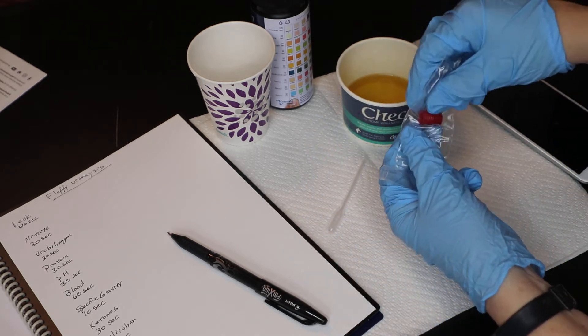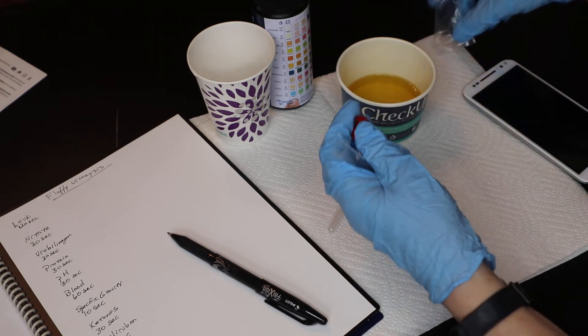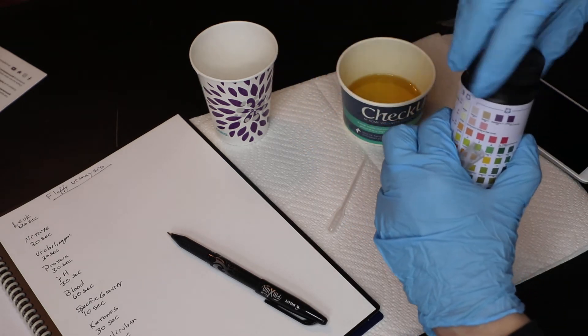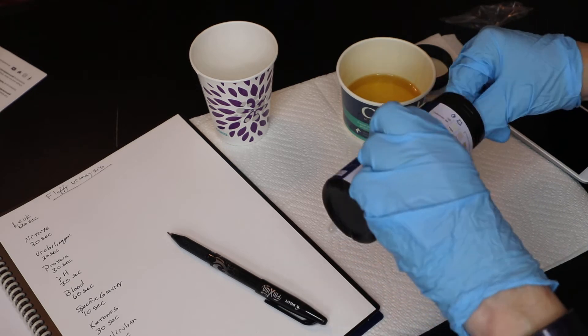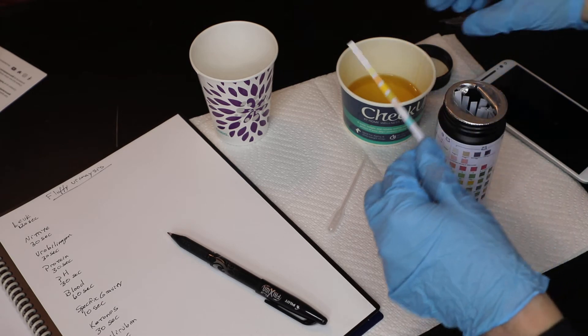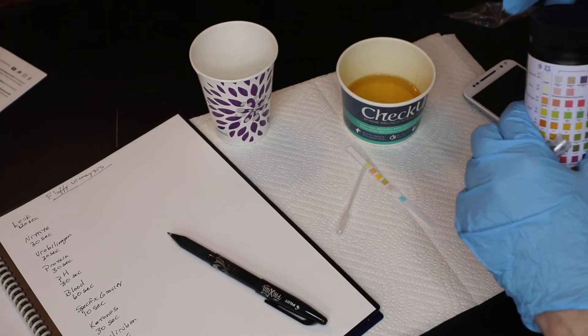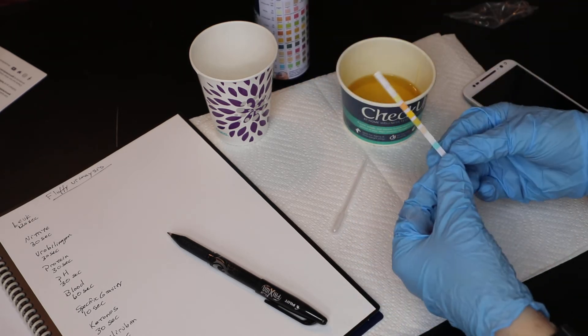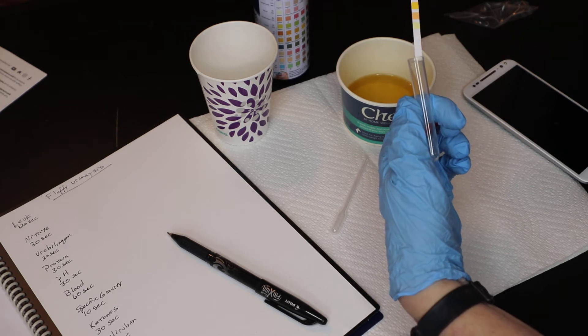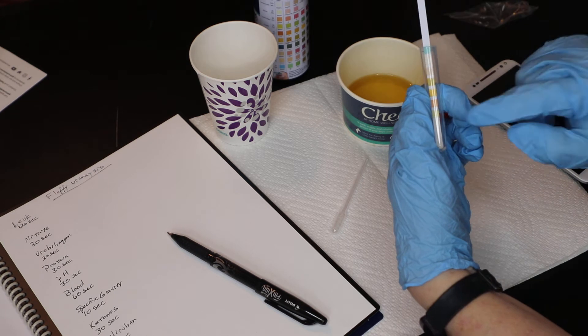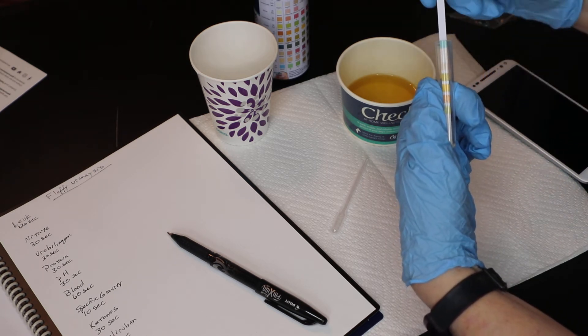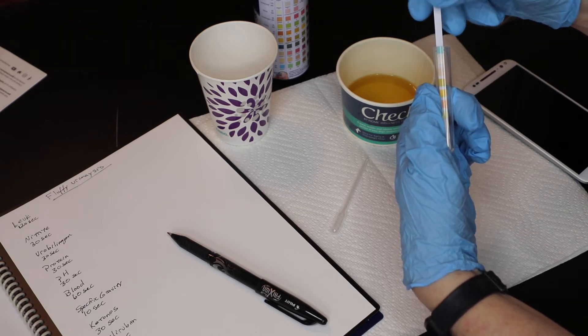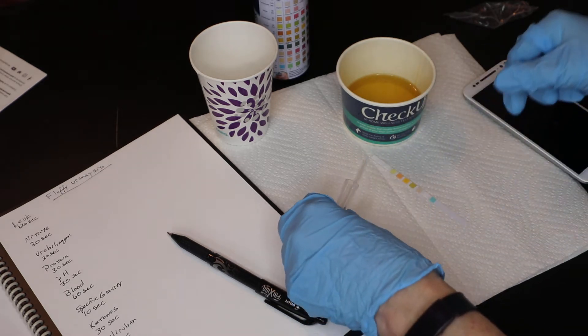This is the test tube. This test tube is not large enough for this strip to fit into, to dip the strip into the urine. You'll notice that when you open yours up you will have a seal on there. So there's one of the test strips. There's our color. We'll need that later. So I'm going to do this dry because you'll see that that does not fit all the way to the top. And if you were to fill this urine up to say there, it wouldn't reach the top pads on the strip when you put it in that way. So ideally don't use the strip that way.